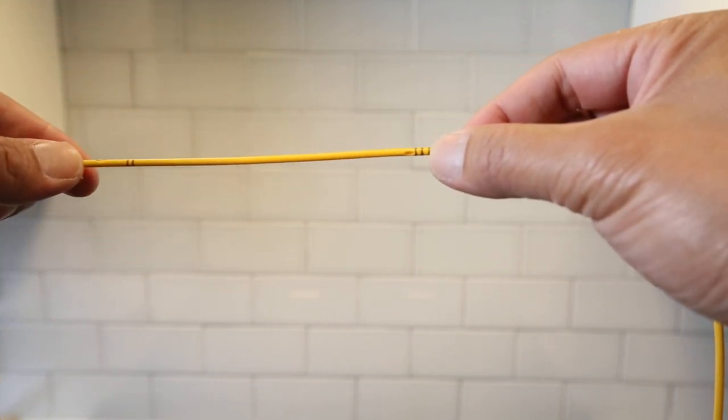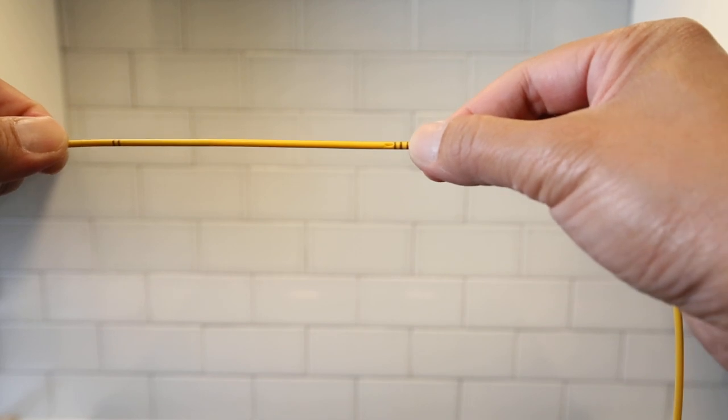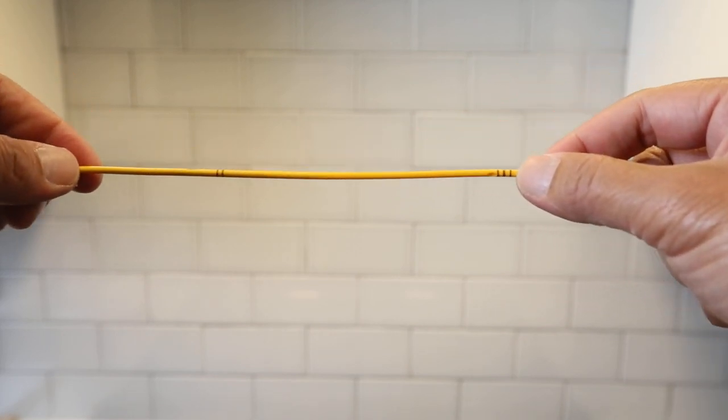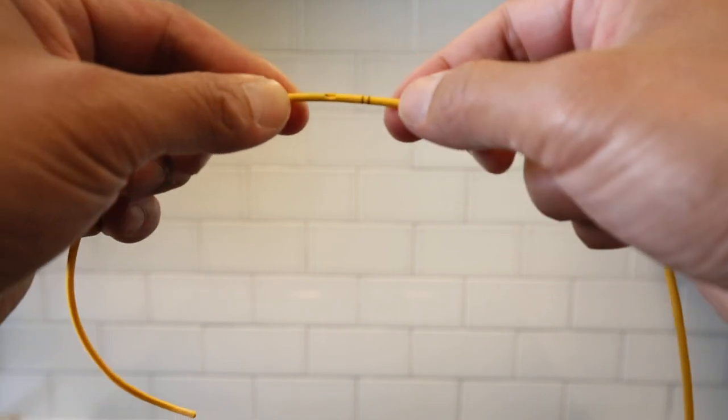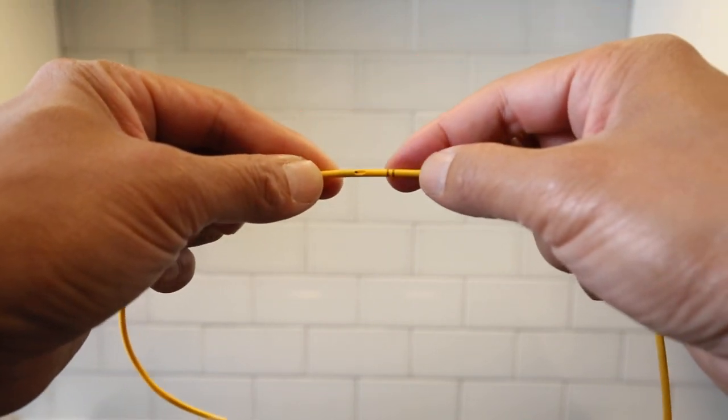And that is your distal port, and then you have your proximal port right there.